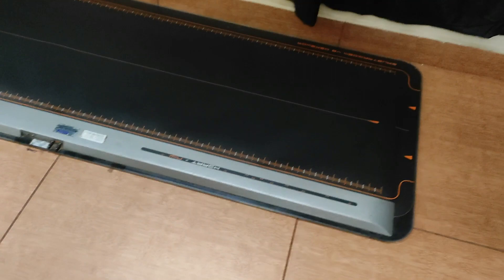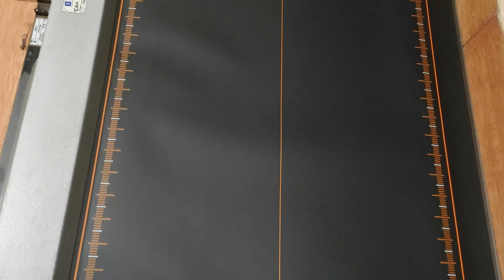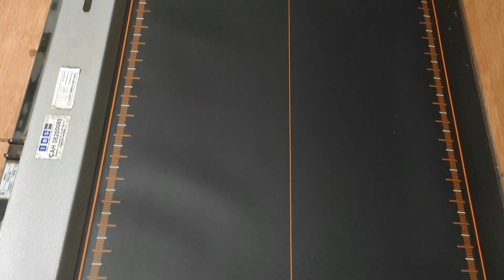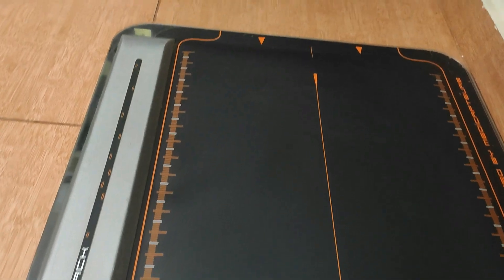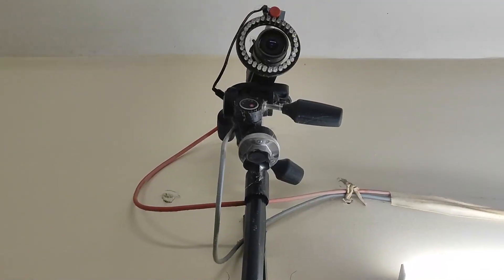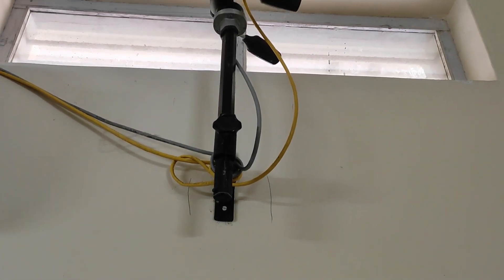What you can see here is the force plate used for gait analysis. This force plate is 1 meter long and it has 9,600 sensors. Each detects weight of 1 kg and displacement of 1 millimeter. Next equipment you can see is the camera, which takes video from two views — the anterior and the lateral.